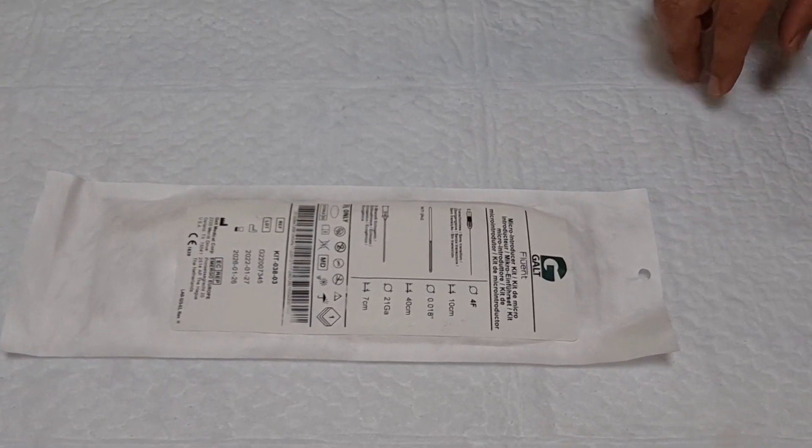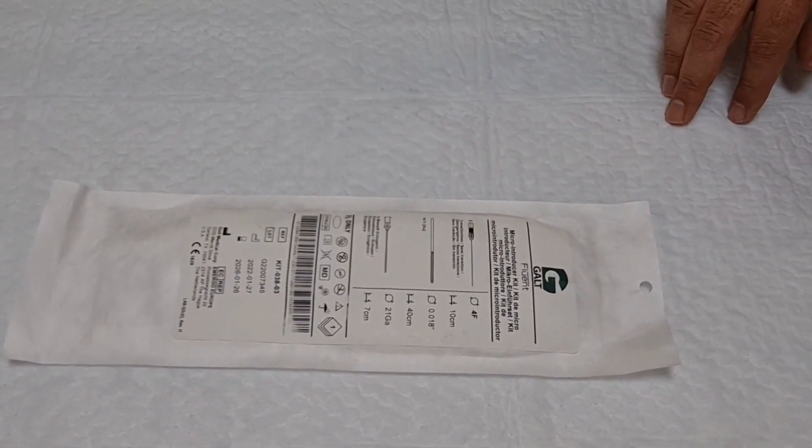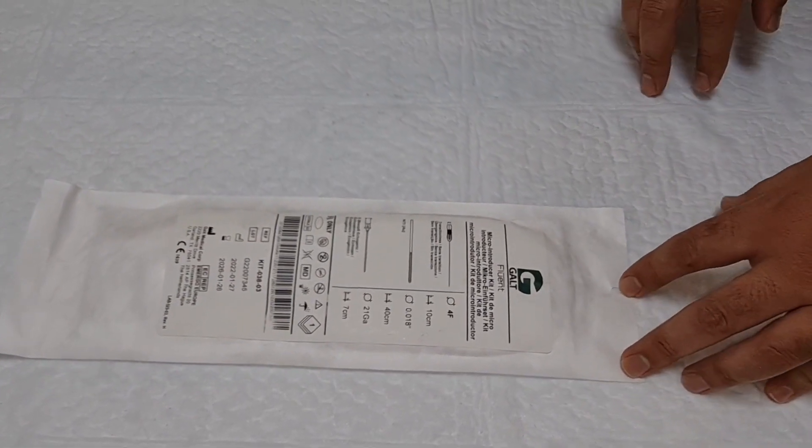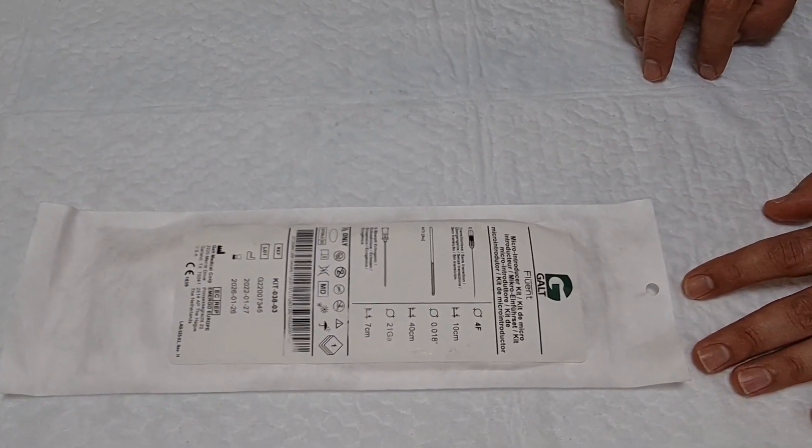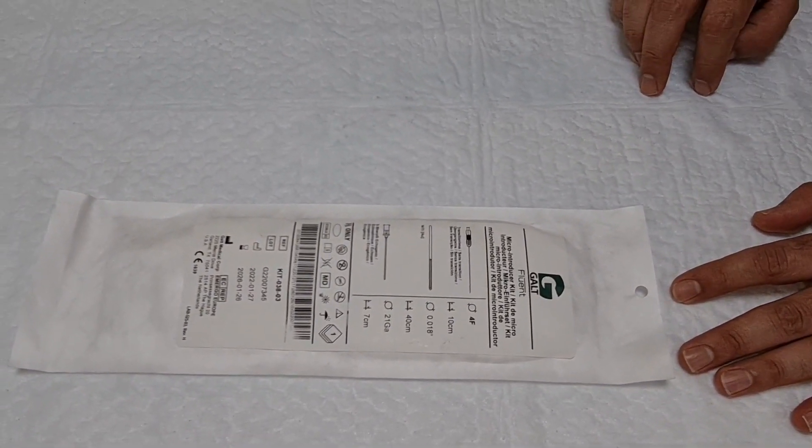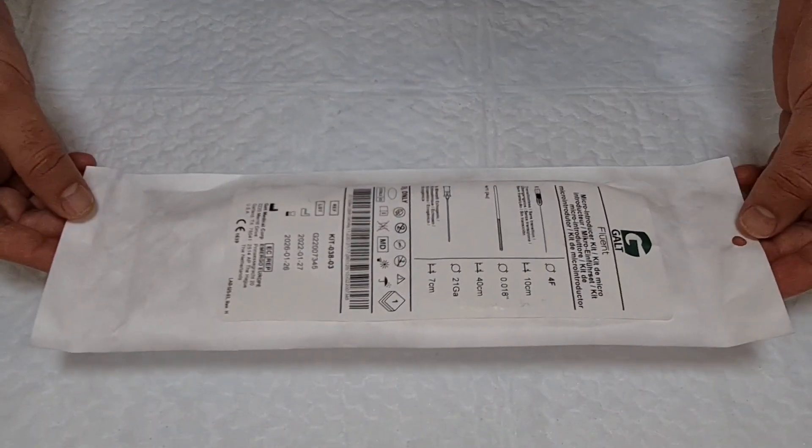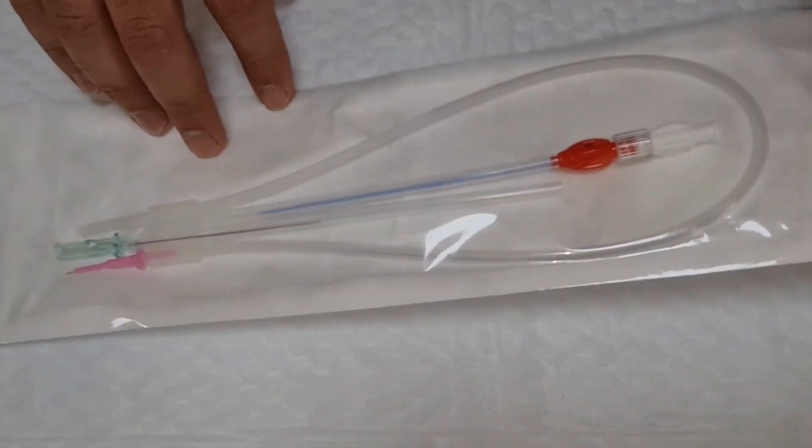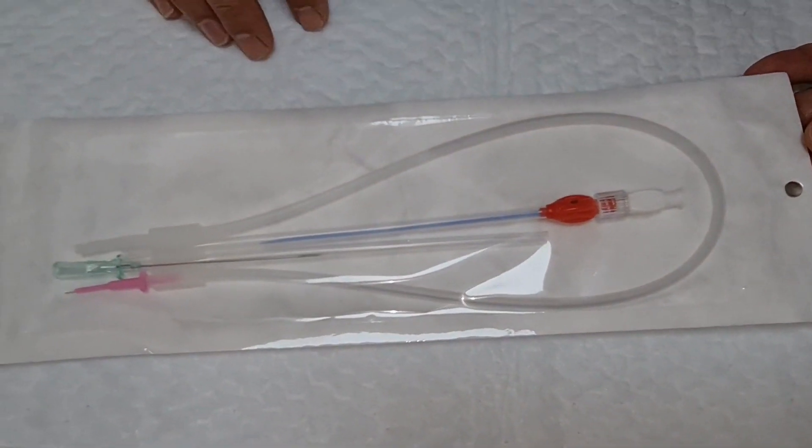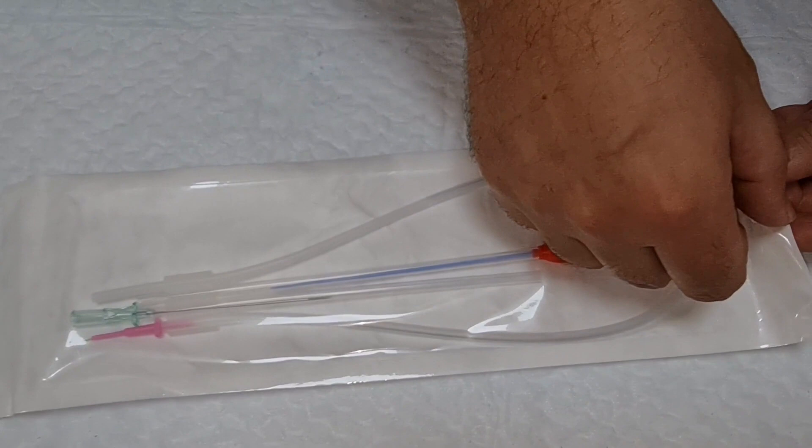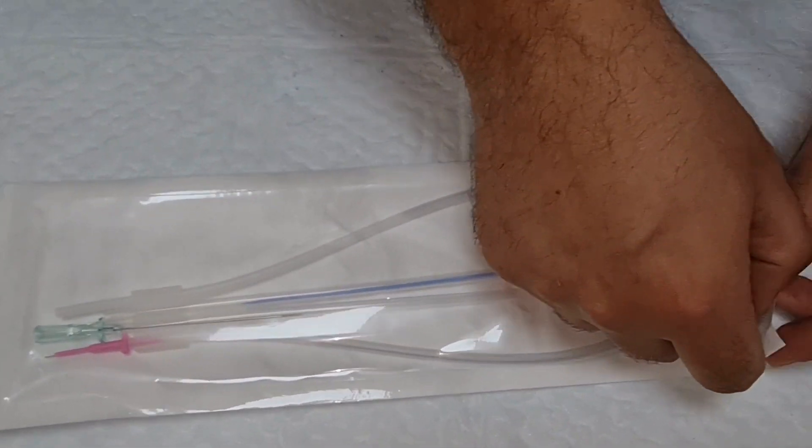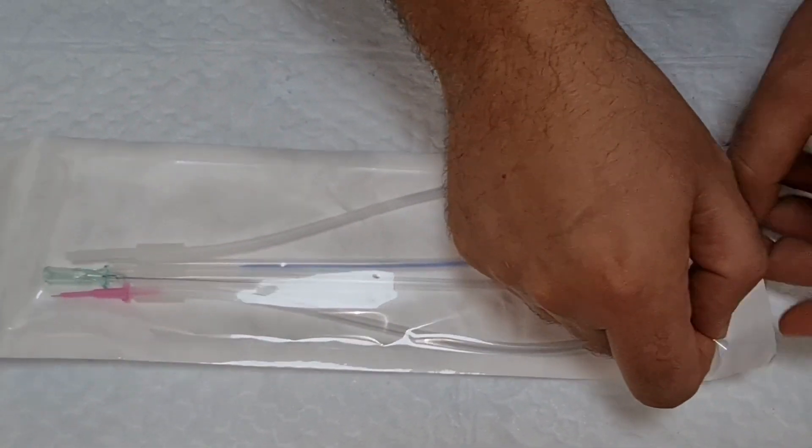Hello everyone, welcome to my YouTube channel Heart to Heart Invasive Cath Lab. In today's video, we are going to talk about the micropuncture or the mini stick or the micro introducer set. This is one of the micro introducer sets. As you can see, this video is only for educational purposes, so I'm going to open this in a non-sterile way. Otherwise, this whole procedure is in a sterile way and it's a sterile procedure.